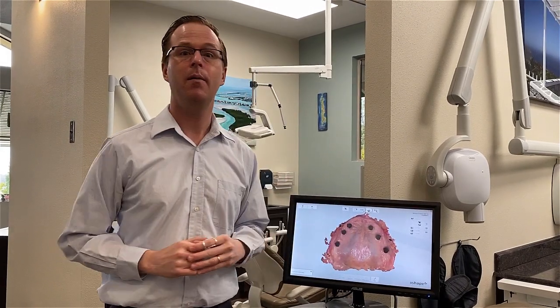It's really pretty amazing. I just had to run back in and get that installed. So the neatest part about this is now that 3Shape TRIOS allows me to export color scans and PLY file format directly from my TRIOS scanner into a USB drive, desktop, network file, anything. 3Shape makes this pretty easy.